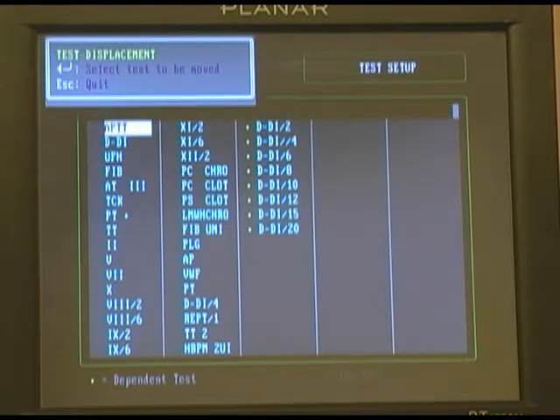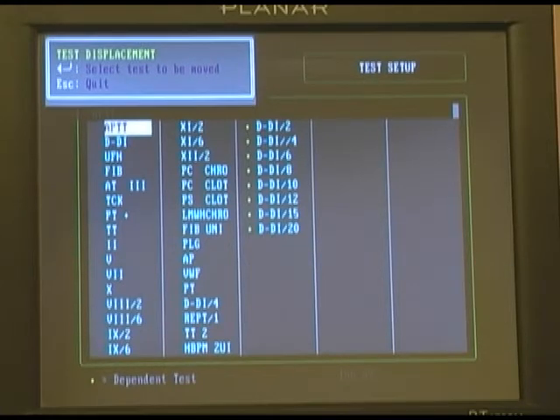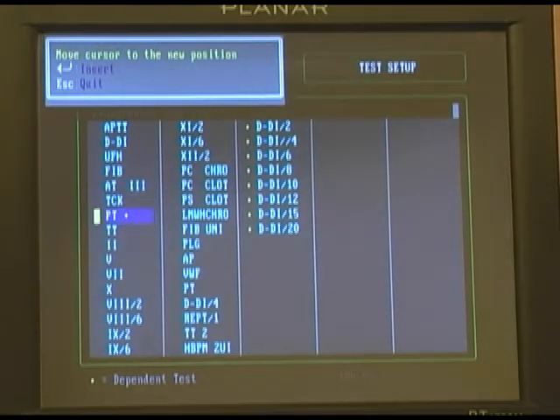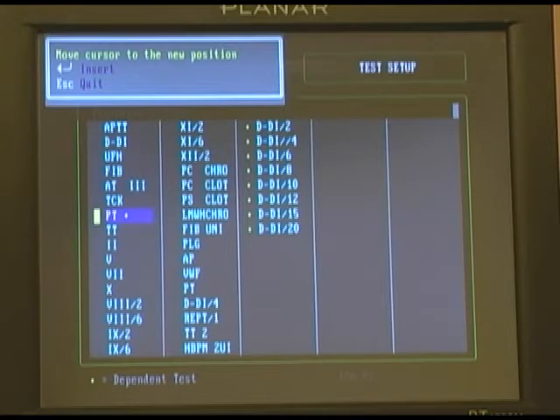just highlight Displace a Test, select the test that you want to move. What we'd like to do is take our prothrombin time, highlight it, and place it where we want the test to reside when we complete this movement.